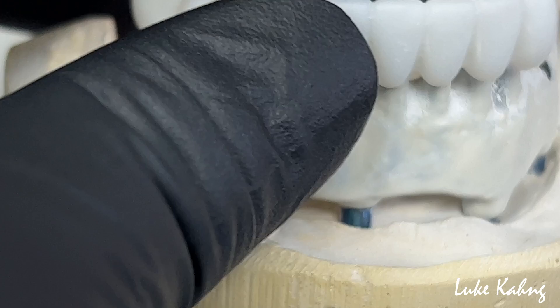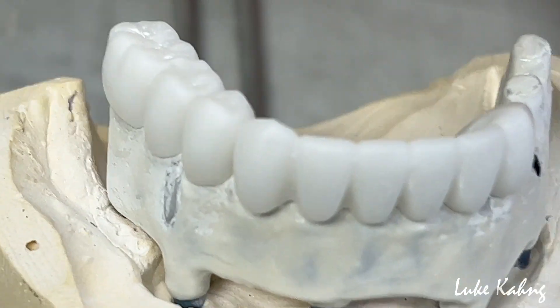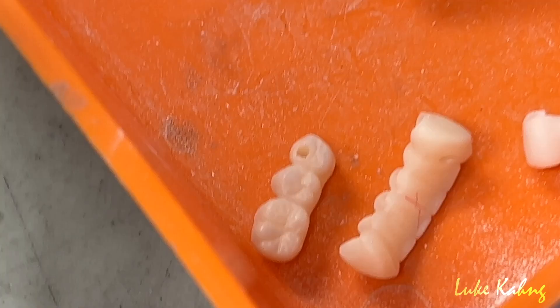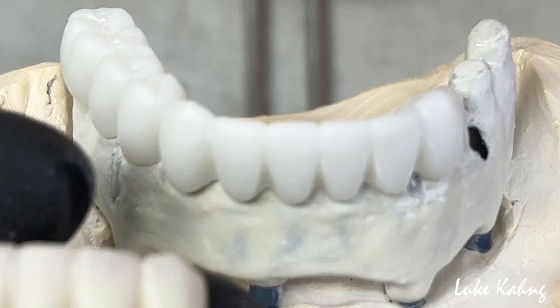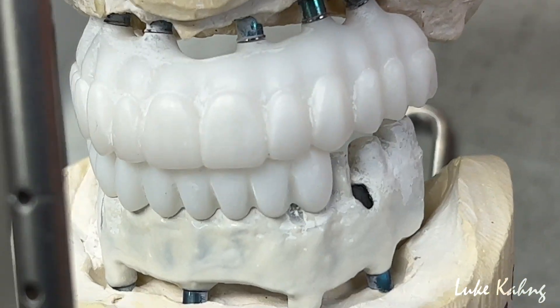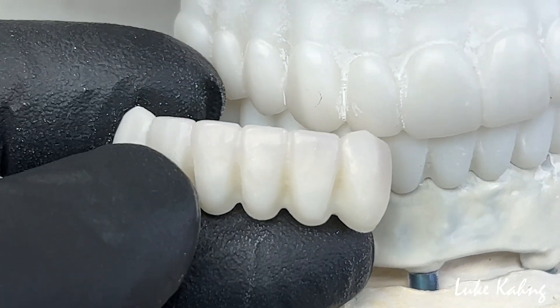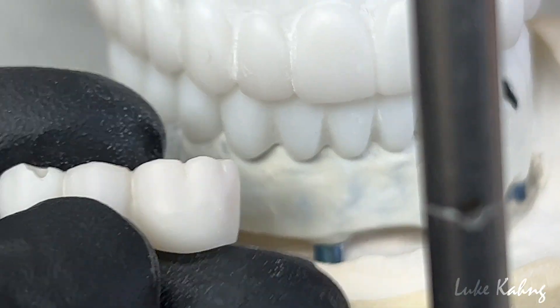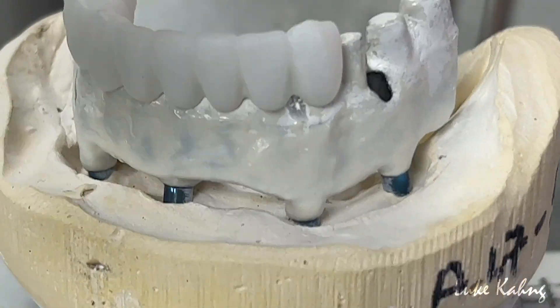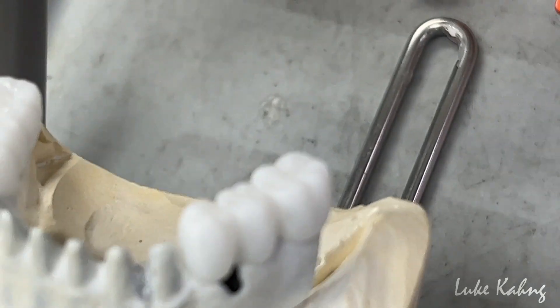I'm finished the mill. The problem is painting compared to dipping — it's always a color issue. The color is different. So we made the 3-unit. Behind the story is last remake, internally, because of the color matching. Now the color is pretty good compared to top and bottom. But compared to what I milled, this is too gray — it's not going to match with the top compared to the bottom. So we milled again — now the color is good. And the cutting is a little bit tight, so we're going to cut it because I can get the occlusion contact right. This is the exact same concept occlusion.